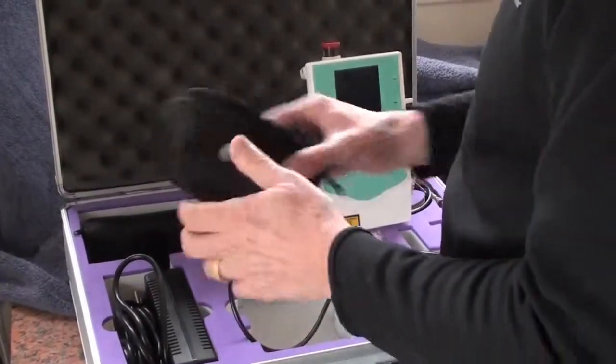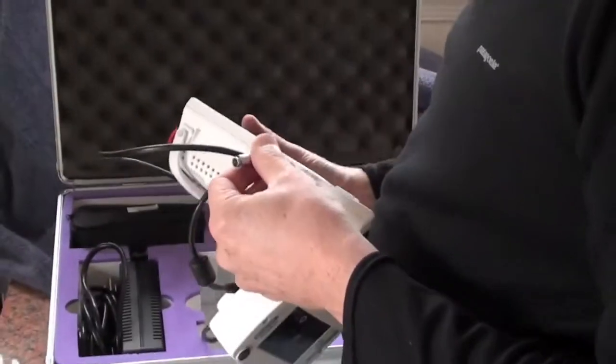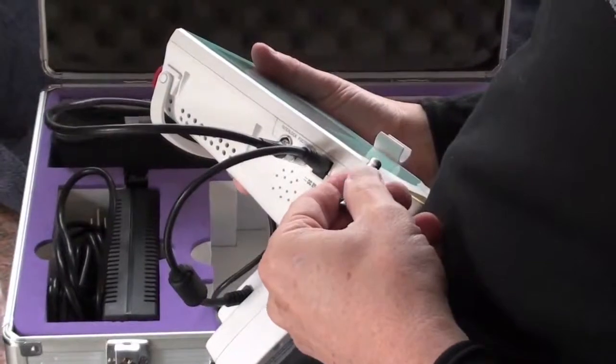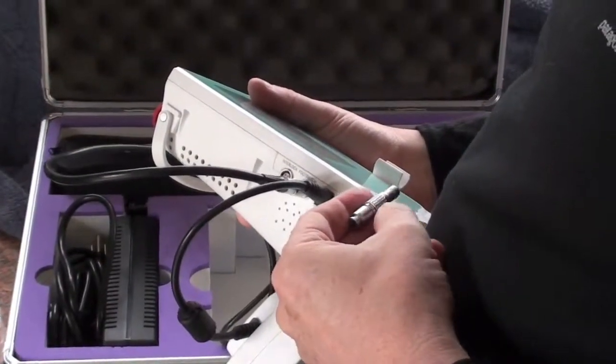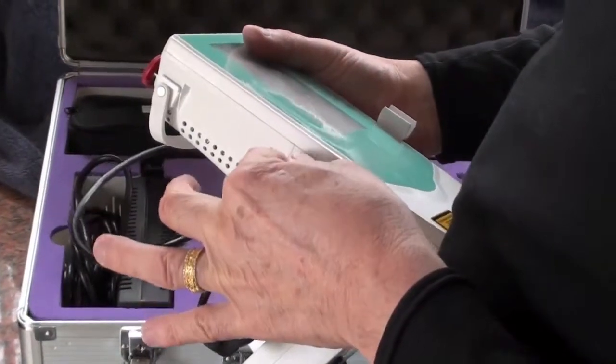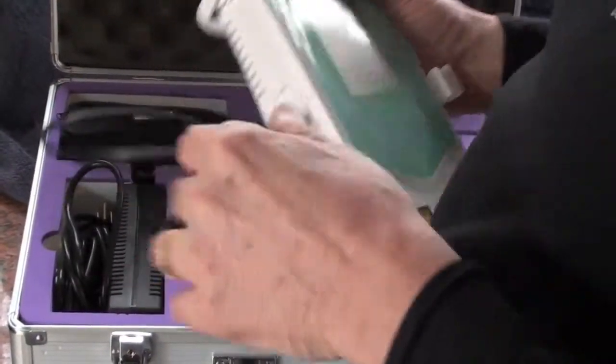You can even write the word interlock on it because if you lose this the laser will not work. We do have them, but it takes time to get them if you lose it. Remember the red. I'm looking for the red. And you stick it in here. 12 o'clock high. There we go.